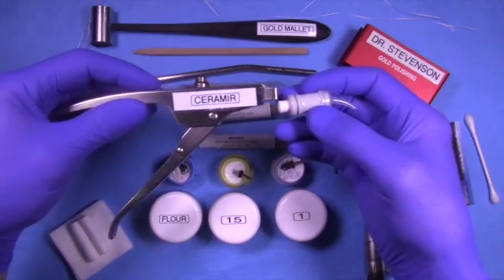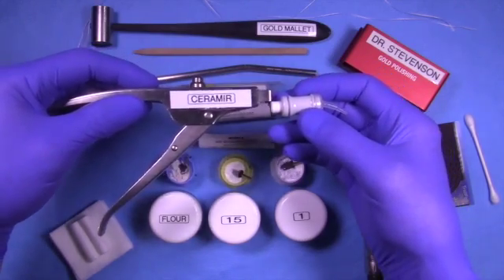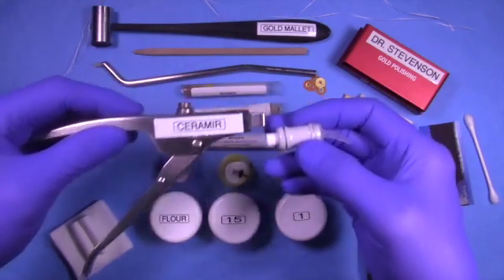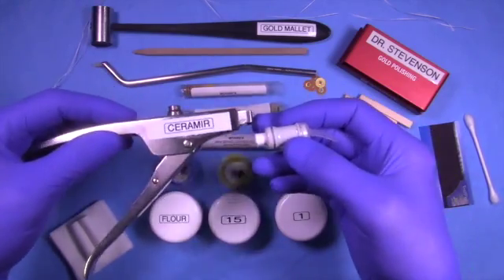I found this cement is probably an improvement over traditional glass ionomer or zinc phosphate because of its bioactive capabilities in actually attracting calcium phosphate and helping to remineralize the enamel margins.